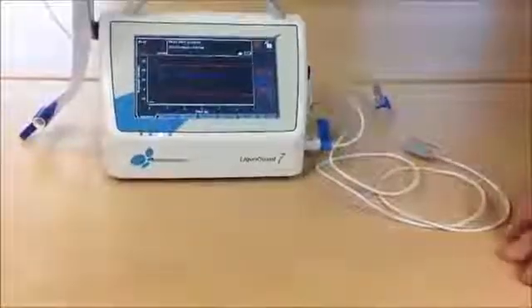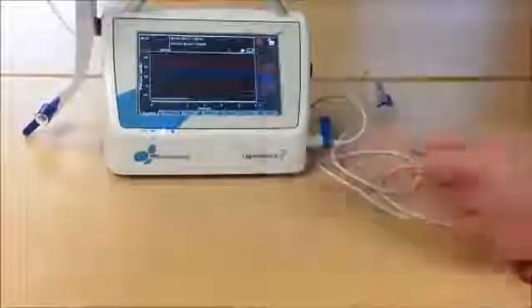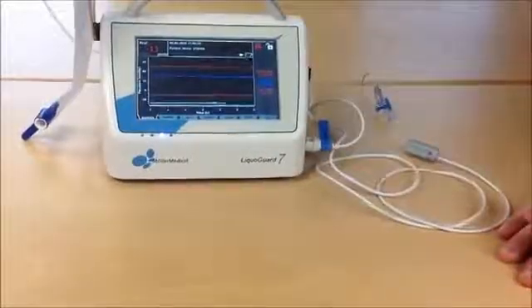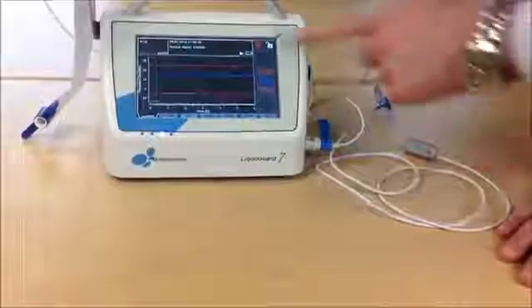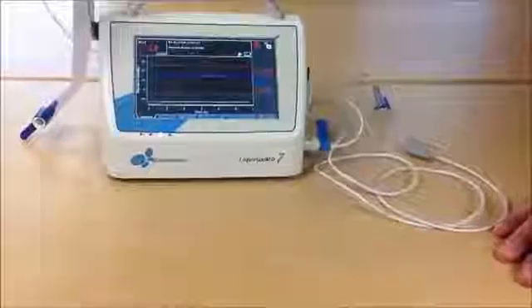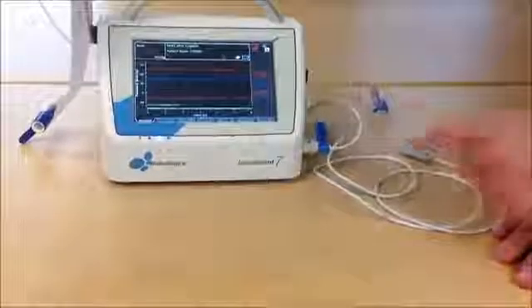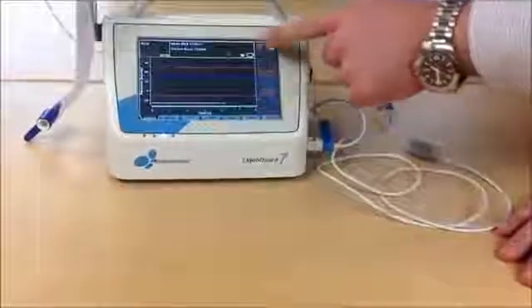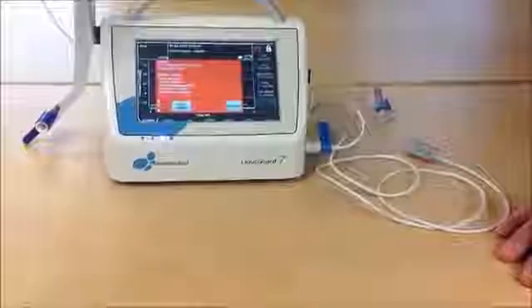Now the alarm window is gone, but the alarm LED is still flashing, indicating that there is an alarm situation. And the alarm bell is crossed out, means you silented an alarm. When you press the crossed out alarm bell, the alarm window will come back again.